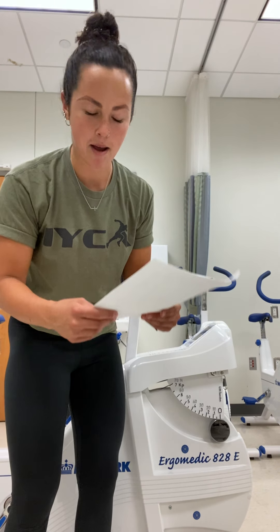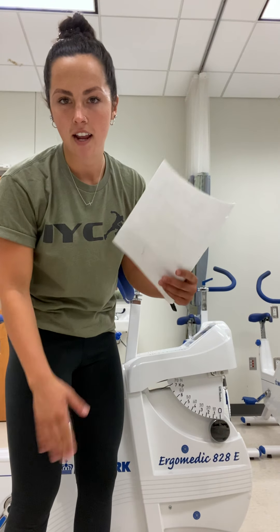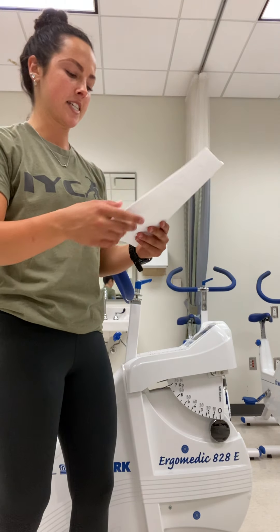KP and KG are used interchangeably — they mean the same thing in terms of this lab. On future labs you might see KP instead of KG, but they both just refer to your resistance.